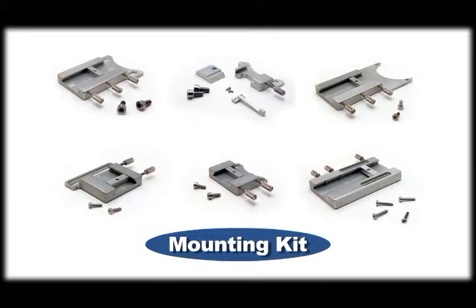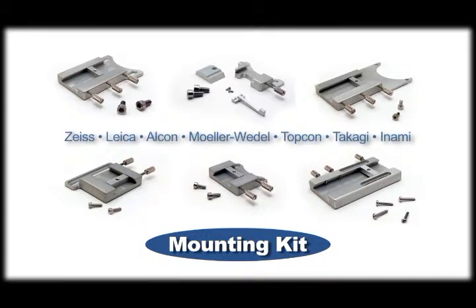Select the appropriate mounting kit for the scope where the system will be installed. The Merlin System can mount to all major manufacturer scopes including Zeiss, Leica, Alcon, Moeller-Wedel, Topcon, Takagi, and Inami. The mounting kits are designed to fit appropriately to the specific make and/or model of scope for which they are specified. In most cases, the mounting kits will work only with their particular make of scope.